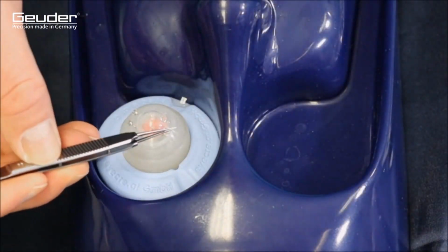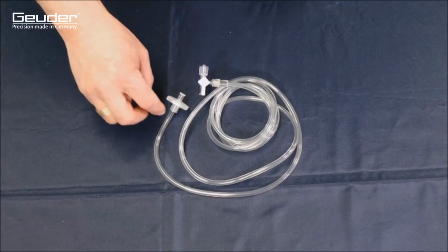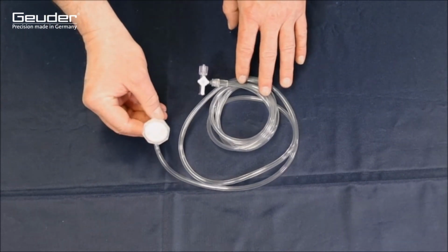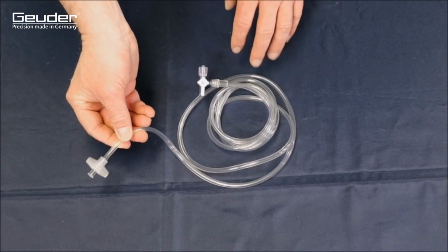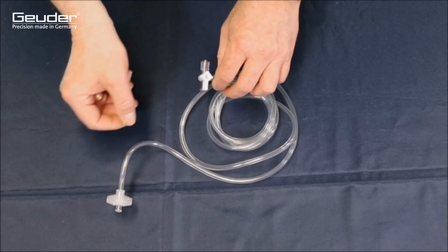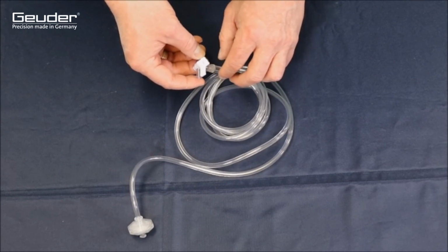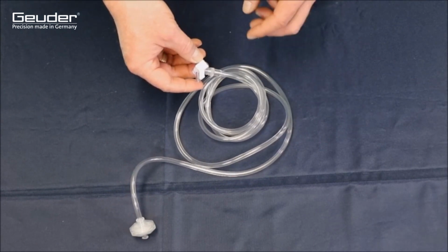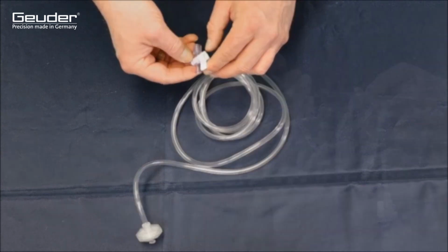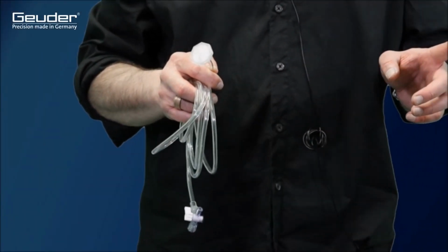The hose of the air injection system is equipped with a permanently attached air filter, which is to be connected to socket 1 of the S4HPS system and enables the provision of microfiltered air for entry into the eye. At the opposite end of the hose, there is a pre-connected three-way valve to which the injection holder of the trocar set and the infusion line coming from the cassette of the device system are connected.